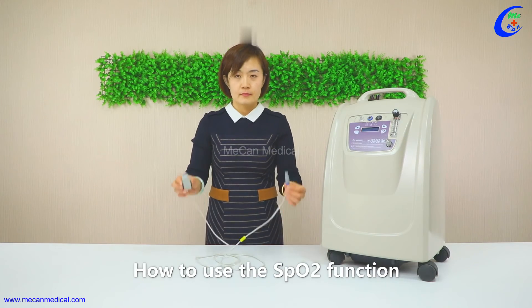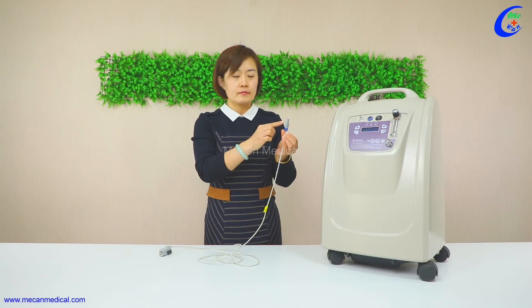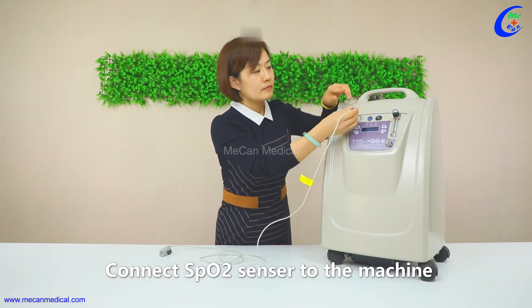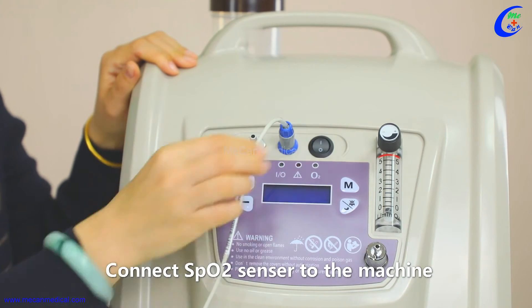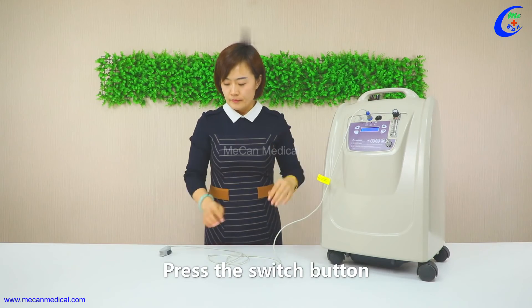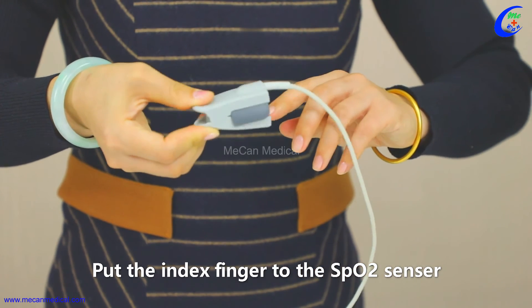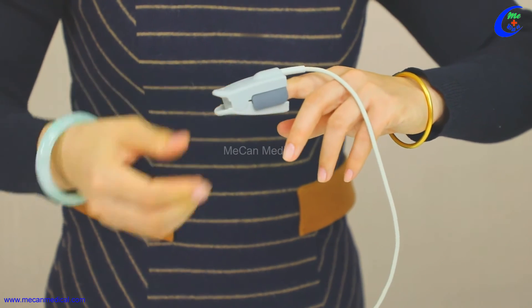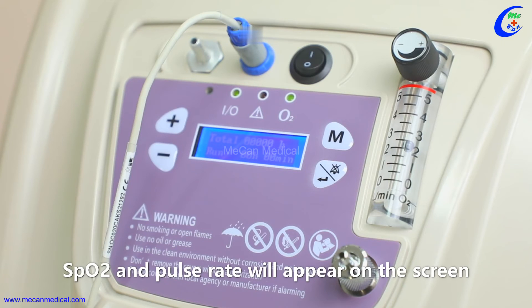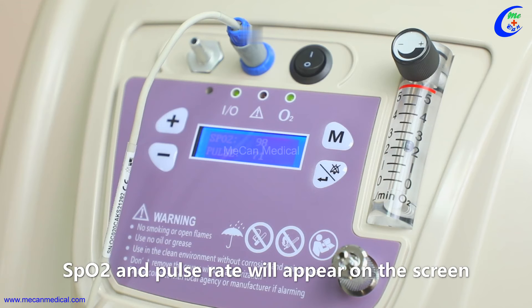How to use the SPO2 function: connect the SPO2 sensor to the machine and press the switch button. Put the index finger into the SPO2 sensor and wait for about 5 seconds. The SPO2 and pulse rate will appear on the screen.